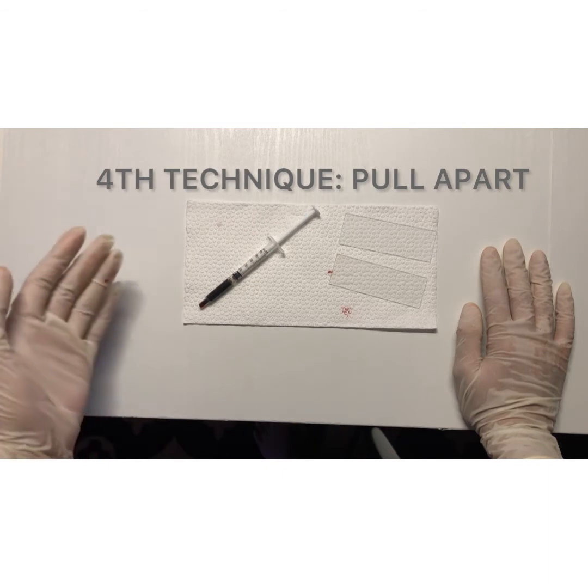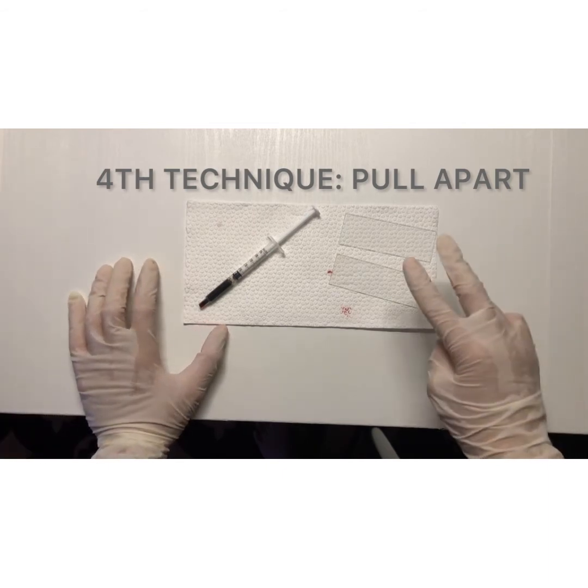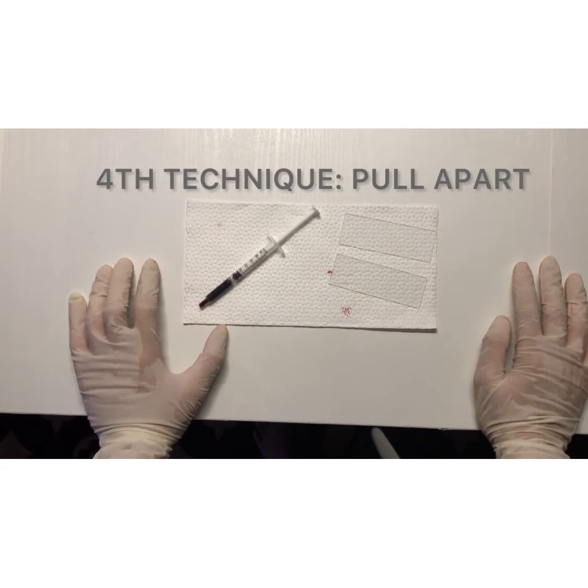So here are my materials, the specimen of choice, which is the pig's blood, and two microscopic slides. So first, I will transfer one drop of the specimen on one end of a clean glass slide.